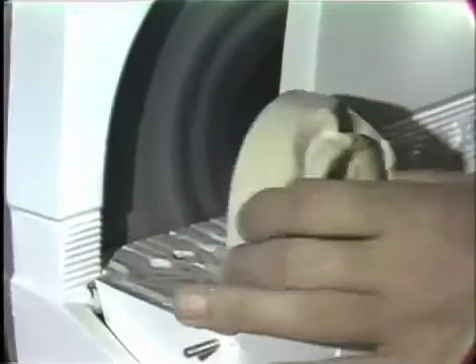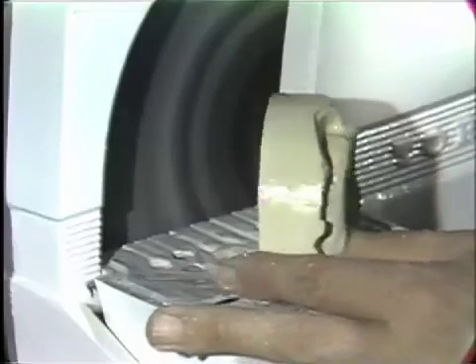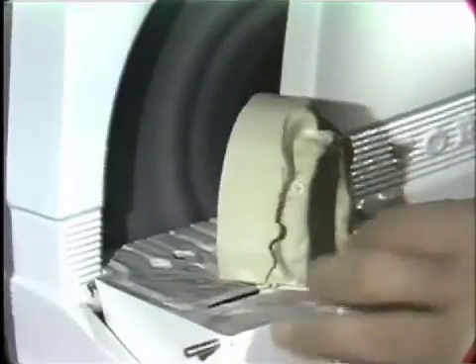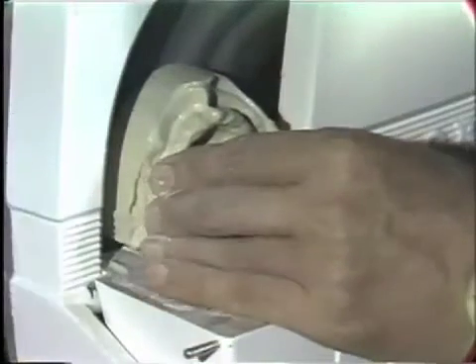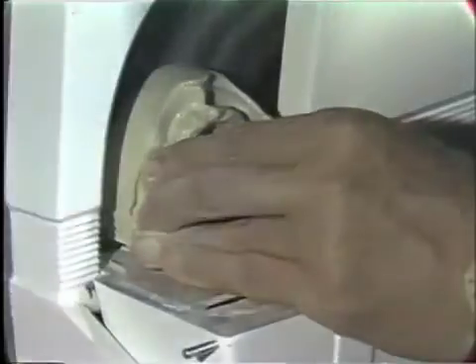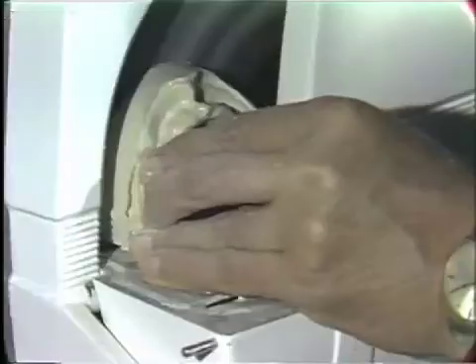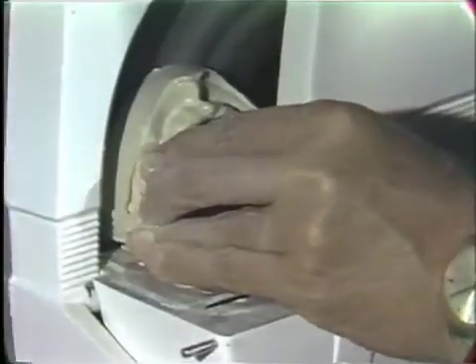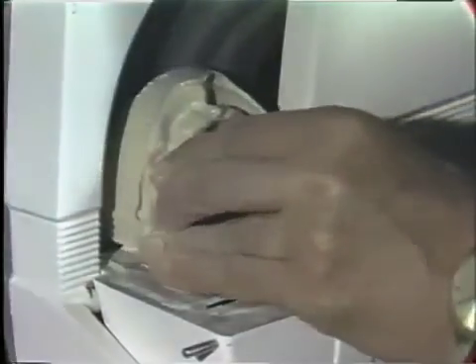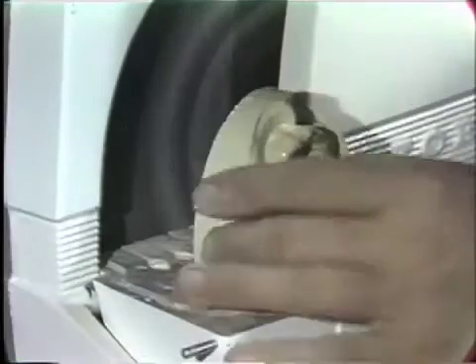At this point you should also inspect the thickness of the flange. As you can see here, we are still quite thick — this should be approximately a half inch. That final modification can be performed by carefully holding the model, again trimming this model, until the flange is approximately a half inch in height.